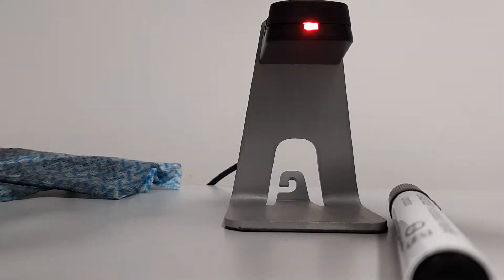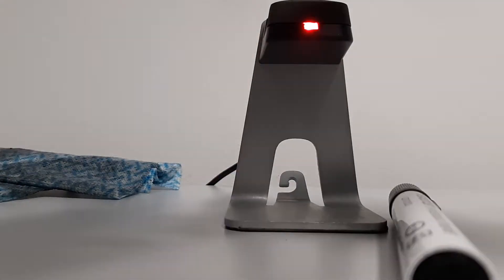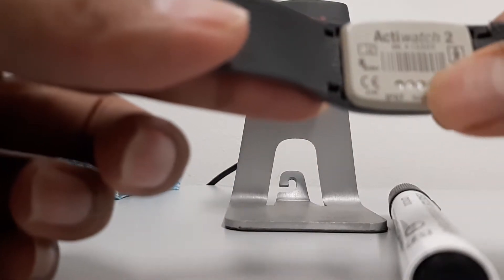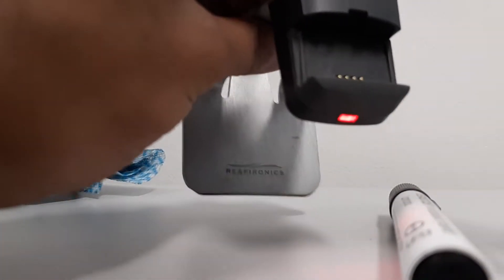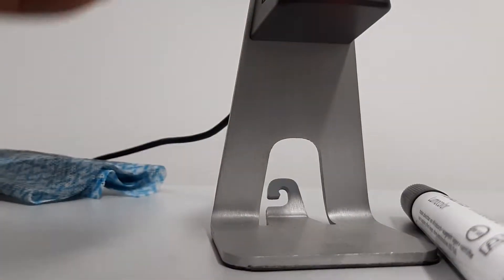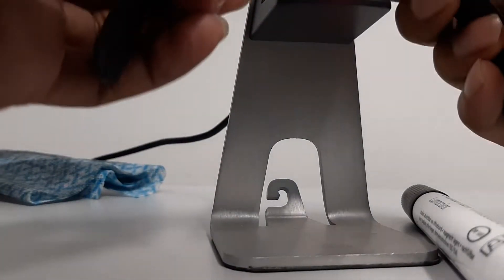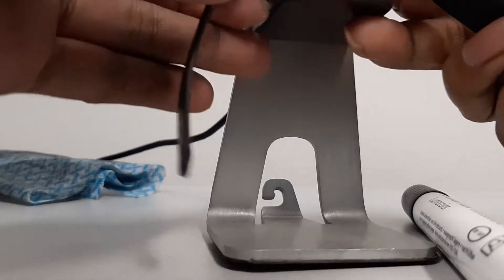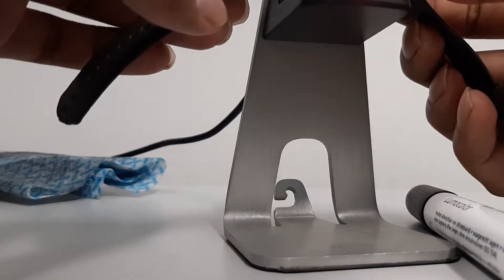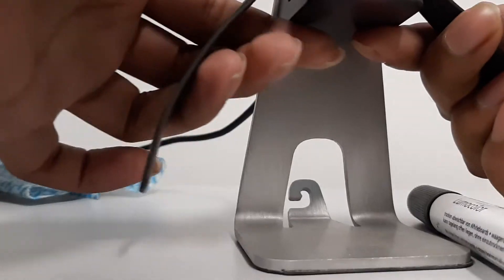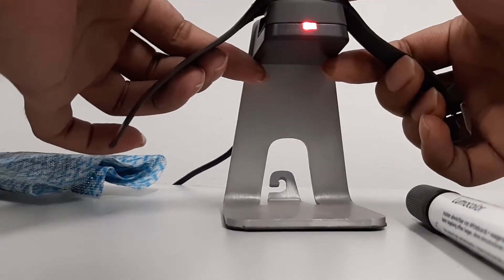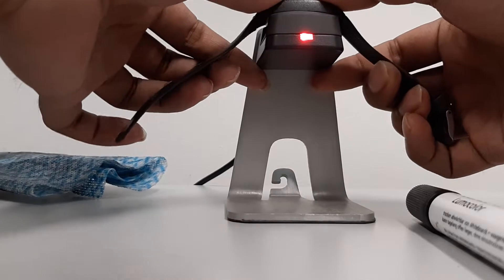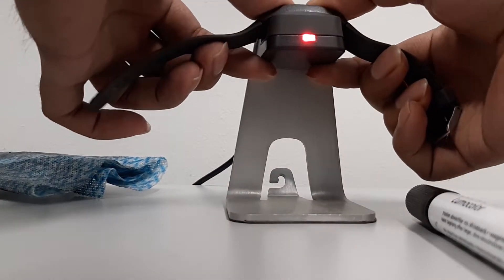Now I am putting on the Actigraph. You'll see that the red color will be turned into green if it gets into contact. If this device gets in touch with the dock, otherwise I need to wipe it using alcohol. I hope it will work.